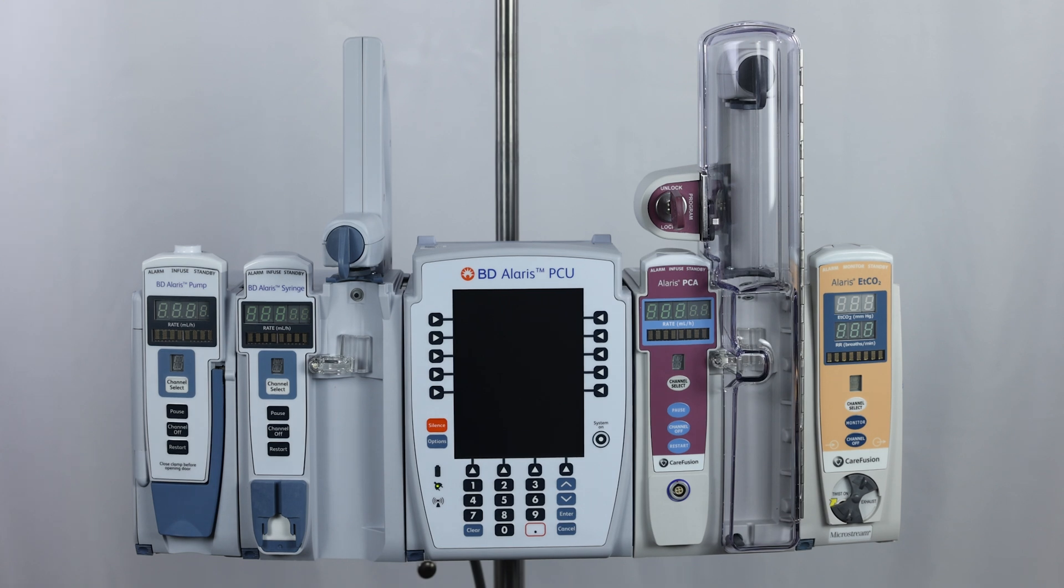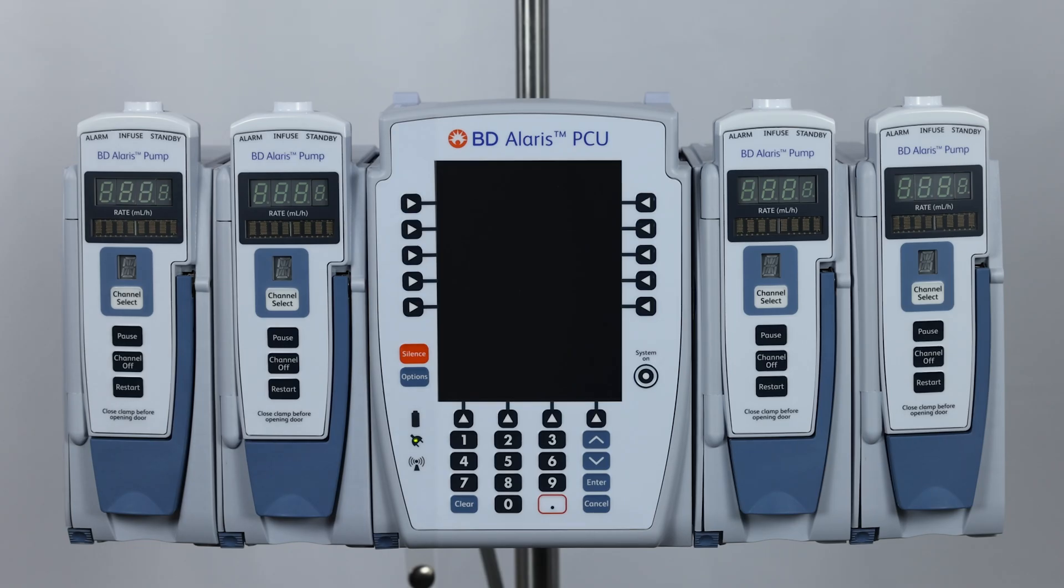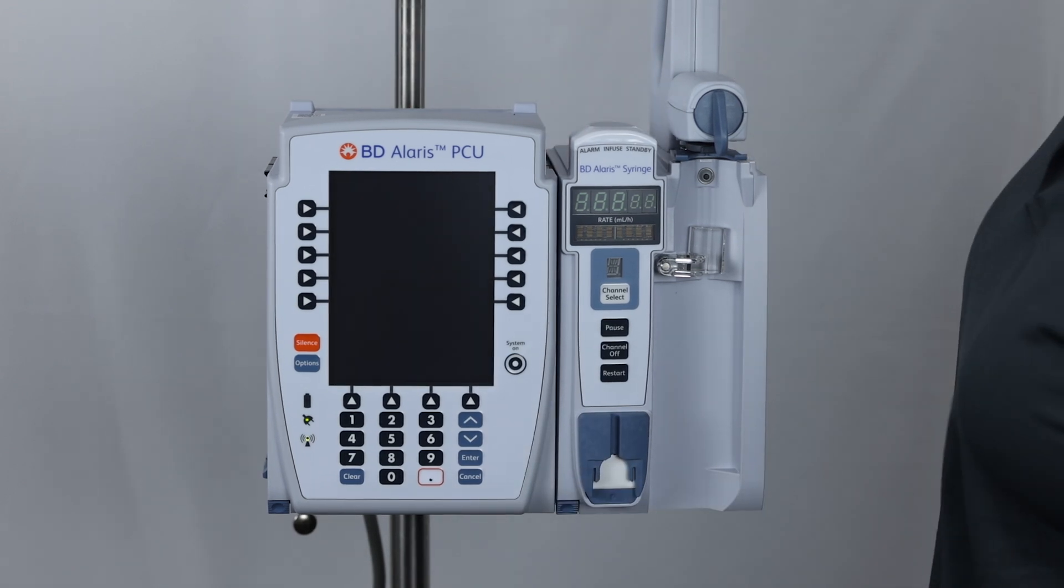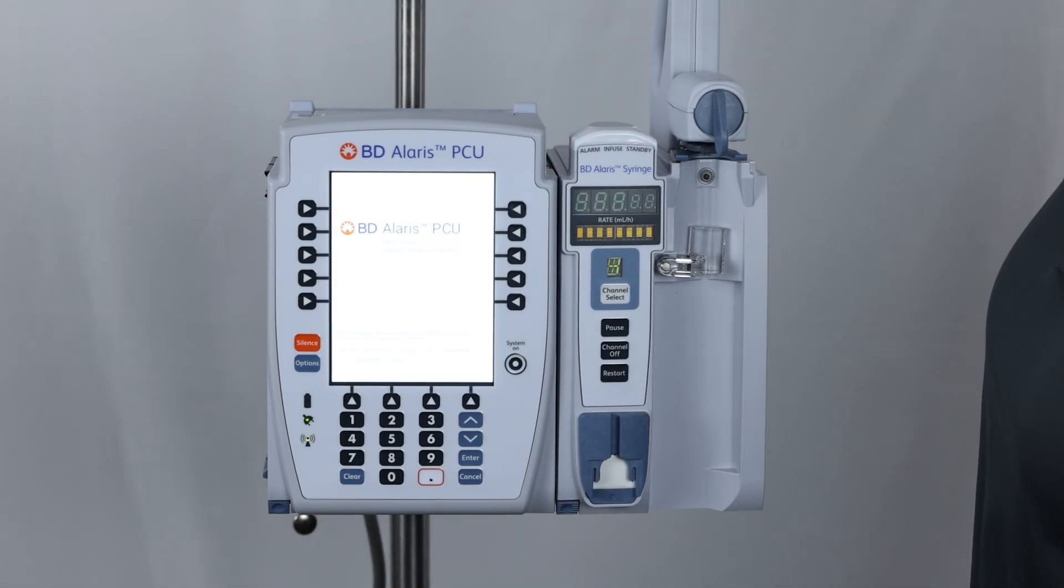Up to four modules of any combination can be attached to the PCU. The Alaris system is powered through a wall outlet but has an internal battery life of six hours, should a power outage prevent the pump from being plugged in.